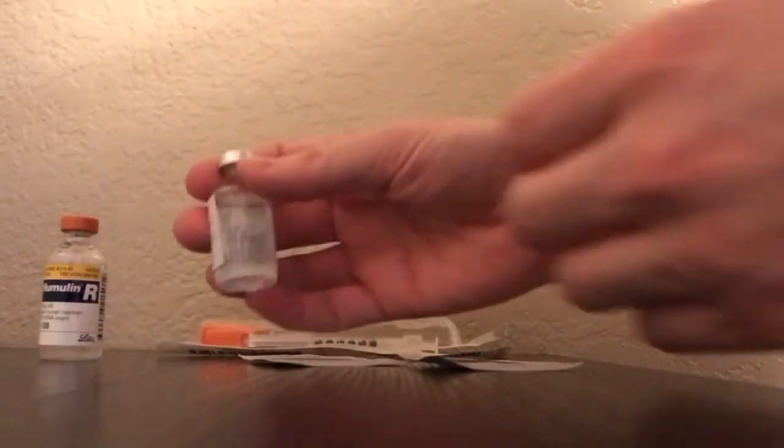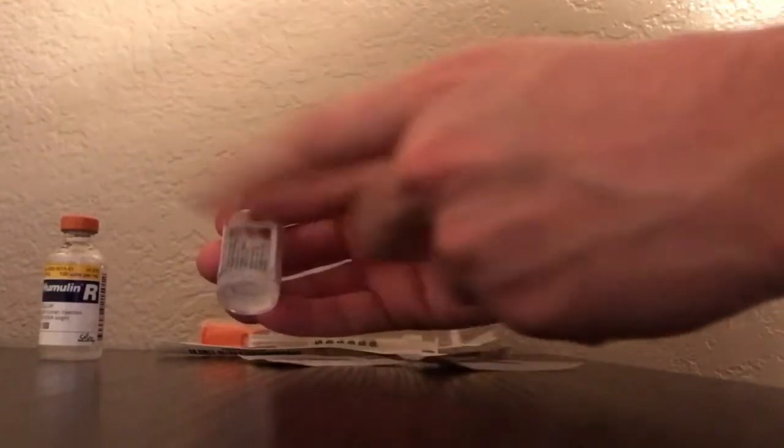Grab your NPH and roll it through your hands. You don't want to shake it because shaking creates bubbles. Roll it gently to help move the insulin around.